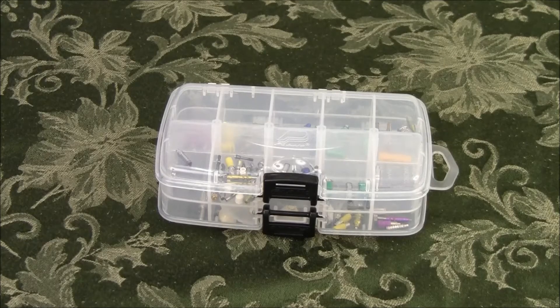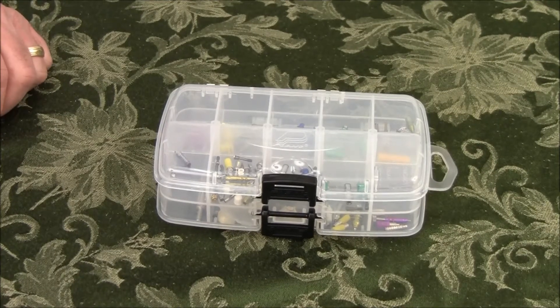In this session, I'd like to discuss briefly the implant componentry and how to best organize it. Over the 18 years that I've been involved with implant dentistry, I've been in thousands of offices and I see a lot of different people organize their components differently. I have come up with, though, what I think is the best solution from what I've seen out there.